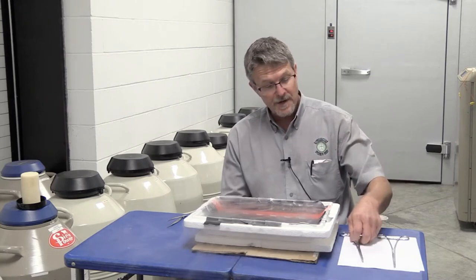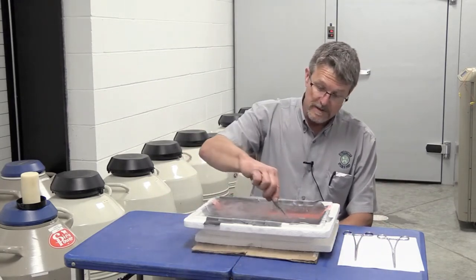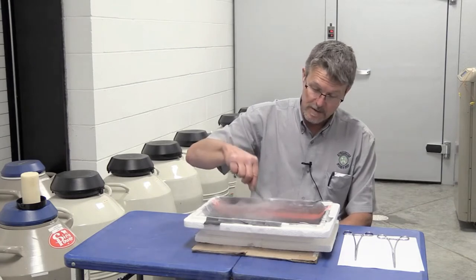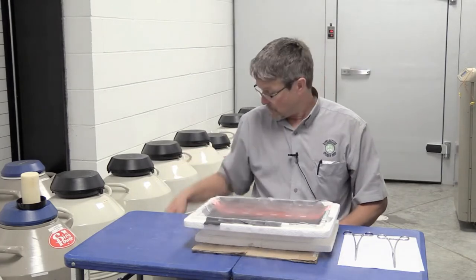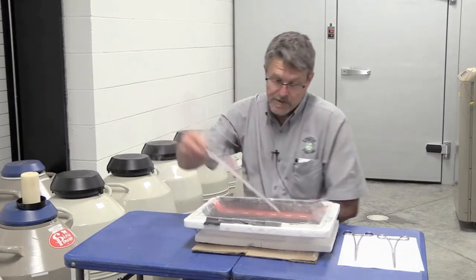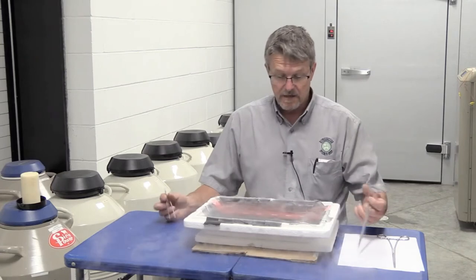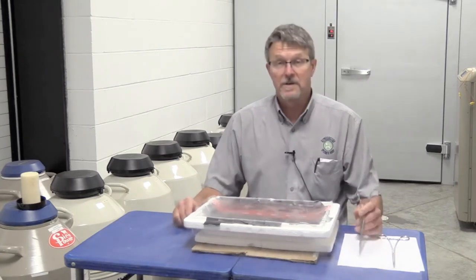Already in my tray I have the two goblets that we're going to split the cane into, and also my extra cane. We're going to pull out of the tank the cane that we're going to work with, and it goes straight into the liquid nitrogen. As you can see, there was probably less than two seconds of air time.